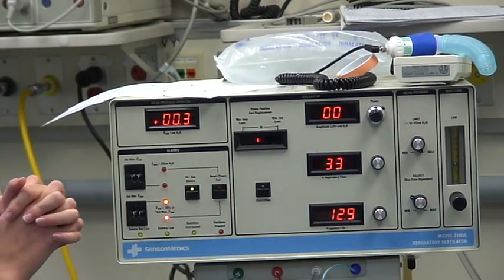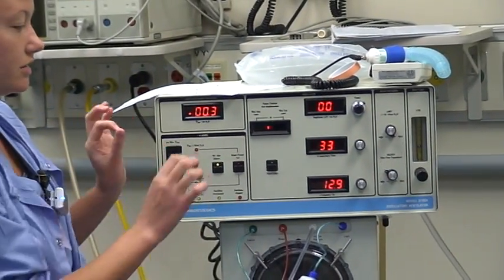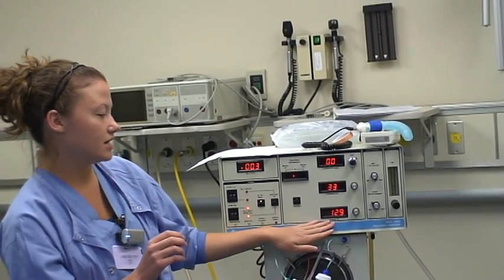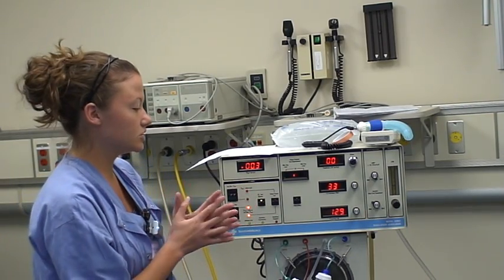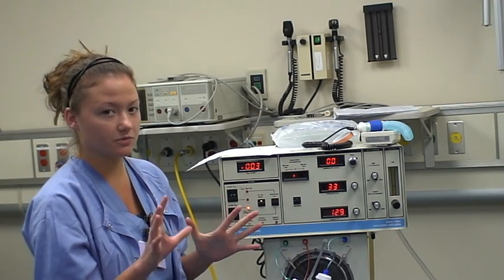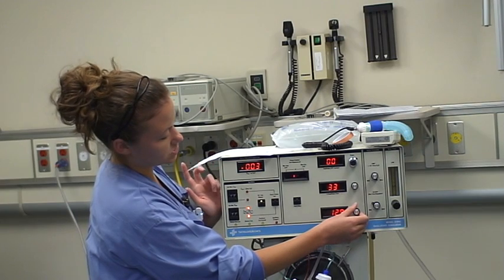The next thing you're going to want to set is the frequency — how many breaths per minute are going to be delivered to the infant. The big difference between the frequency on the oscillator and the respiratory rate on the conventional vent is that the frequency is measured in hertz. One hertz is equal to 60 breaths per minute. It's usually set around 10 to 15 depending on the size of your infant — 15 hertz for smaller infants and 10 hertz for larger infants. Here we can pick 13 because it's in the middle.